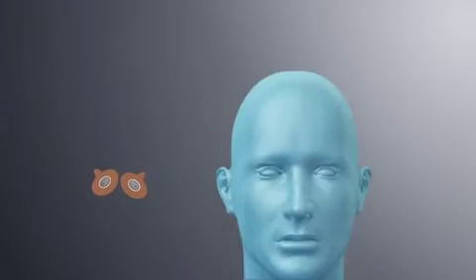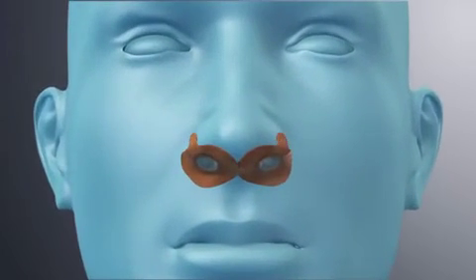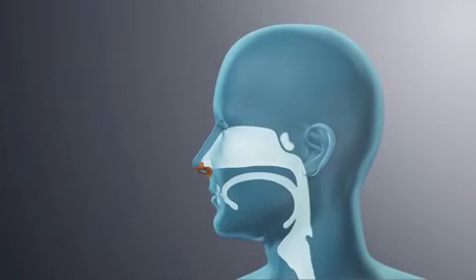ProVent Therapy is a disposable device that attaches with a hypoallergenic adhesive over the nostrils. The proprietary micro-valve technology uses a person's own breathing to create EPAP.